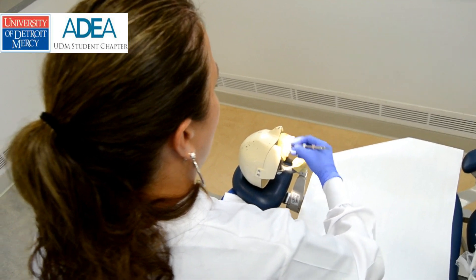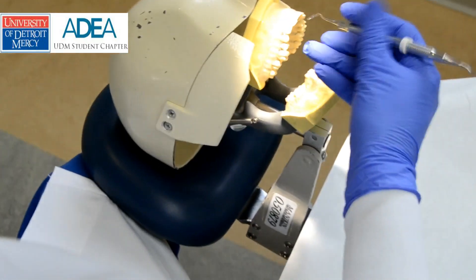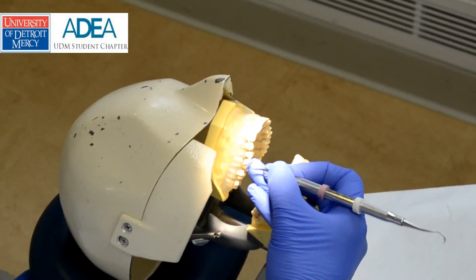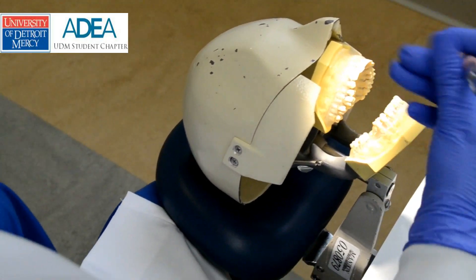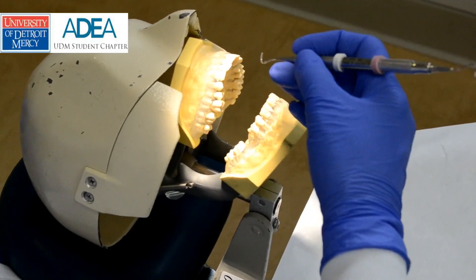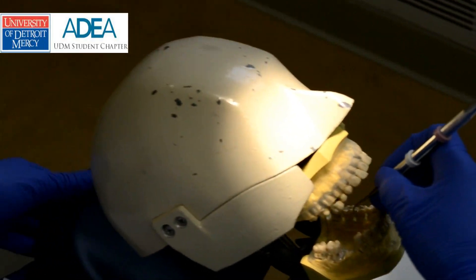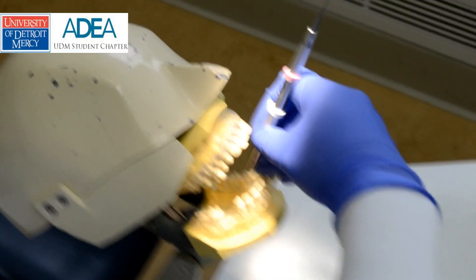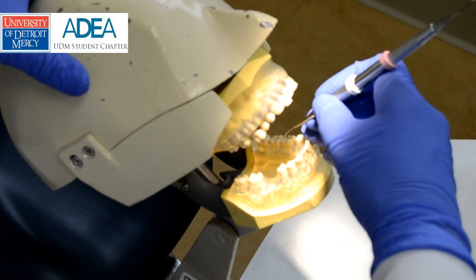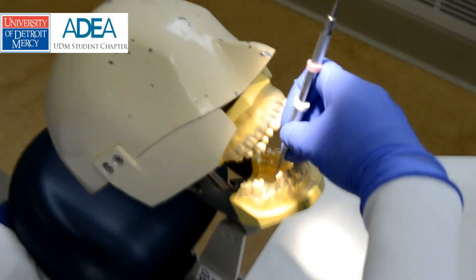If I tried to do palm down for maxillary, you can see I can't instrument this way — it's not applying the blade accurately and creates a lot of fatigue in my fingers. I always want to instrument by rocking on the fulcrum. For mandibular, palm down — I would adjust the headrest and instrument while watching my wrist. This position works well for both mandibular lingual and mandibular buccal.